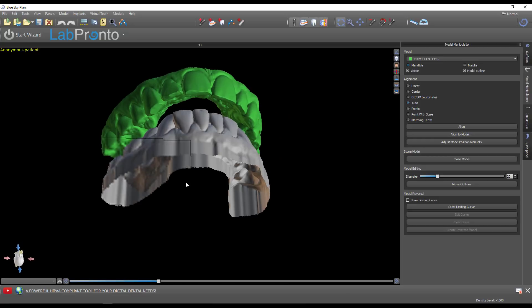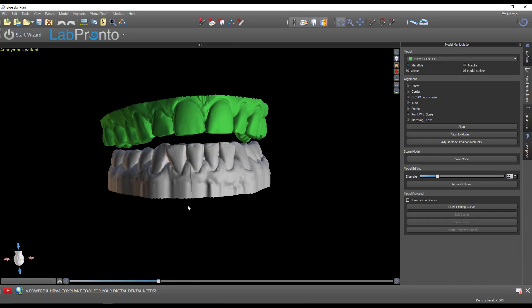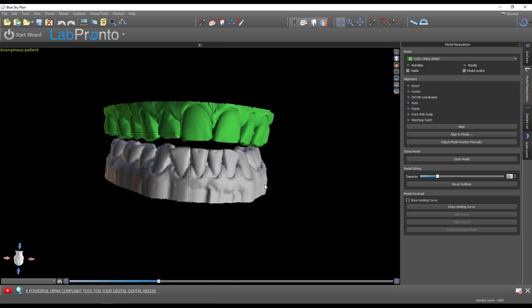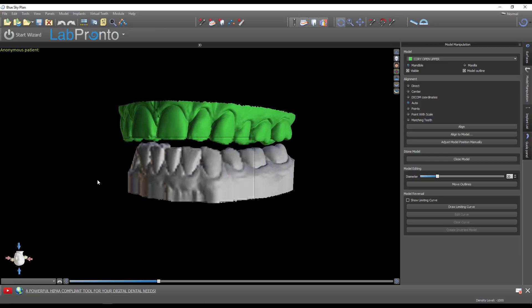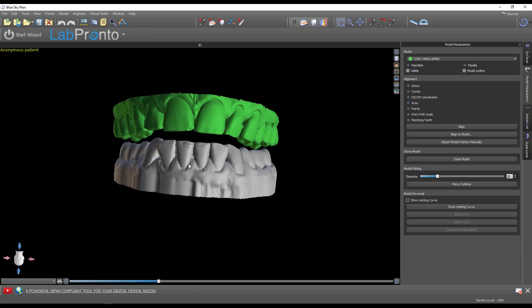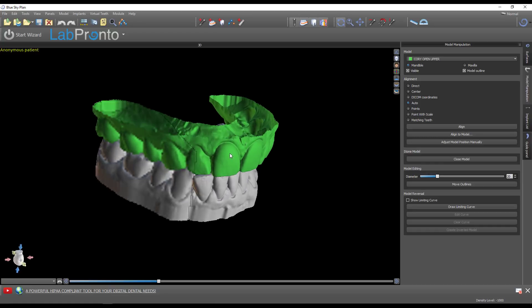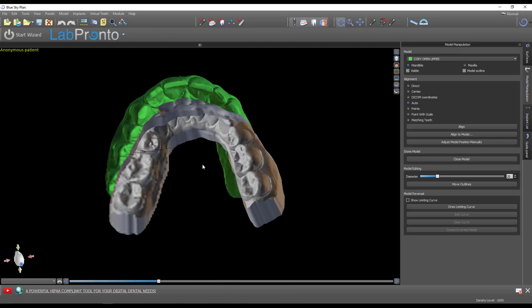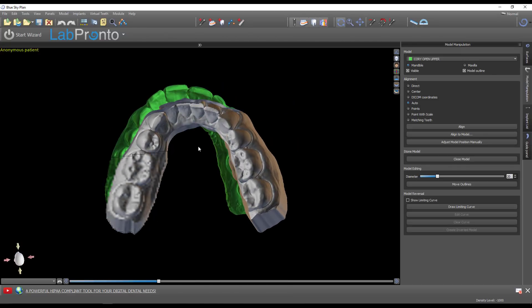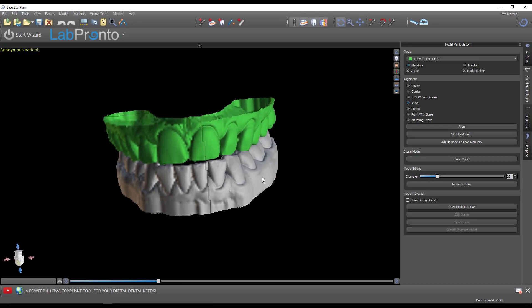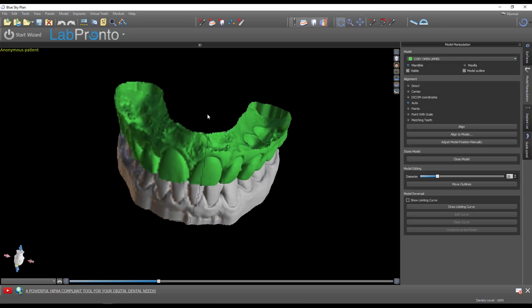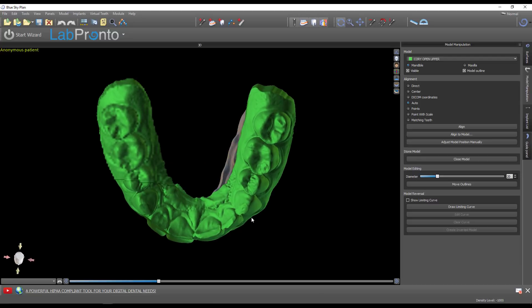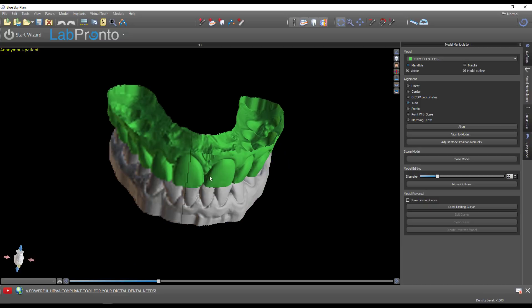Note that there is an open bite. I scanned my upper, scanned my lower, then used a leaf gauge and opened myself up, making sure I had clearance between the posterior teeth, then closed on the leaf gauge and took the buccal bite. It's useful to have the models be open on one side because we're going to exploit that feature by looking through the top to help adjust the occlusion.